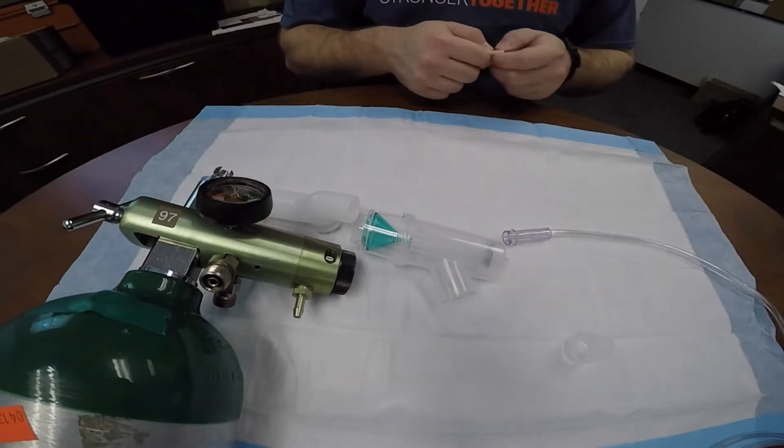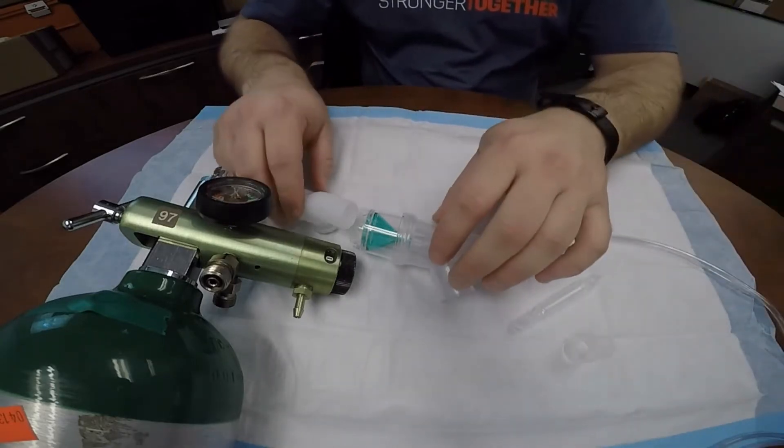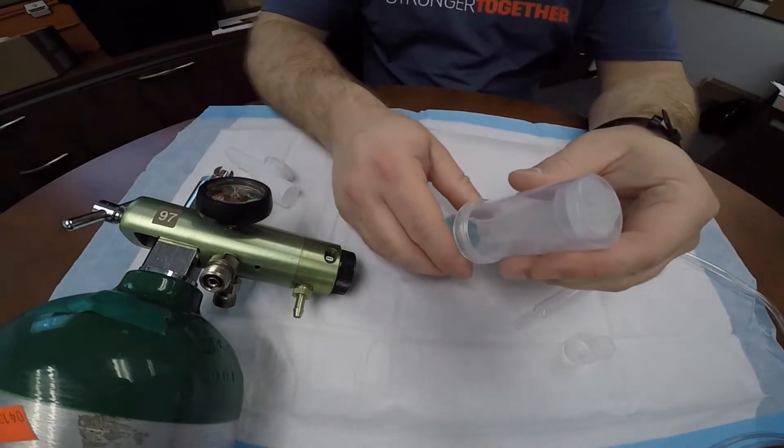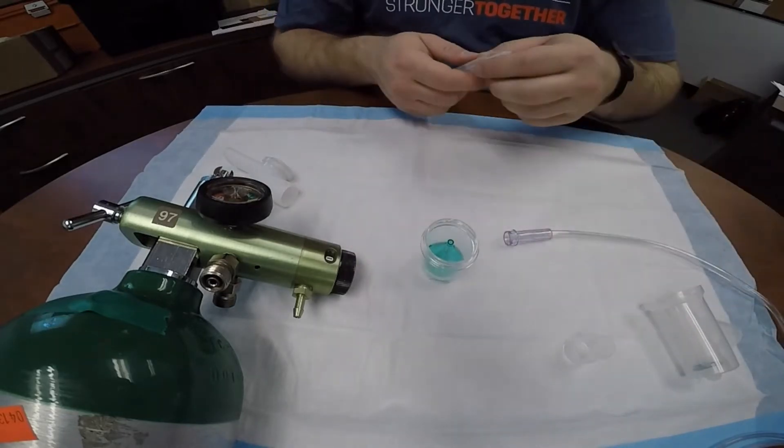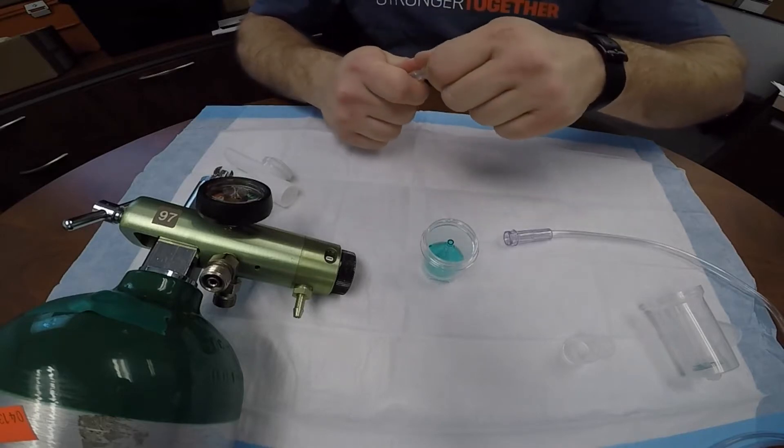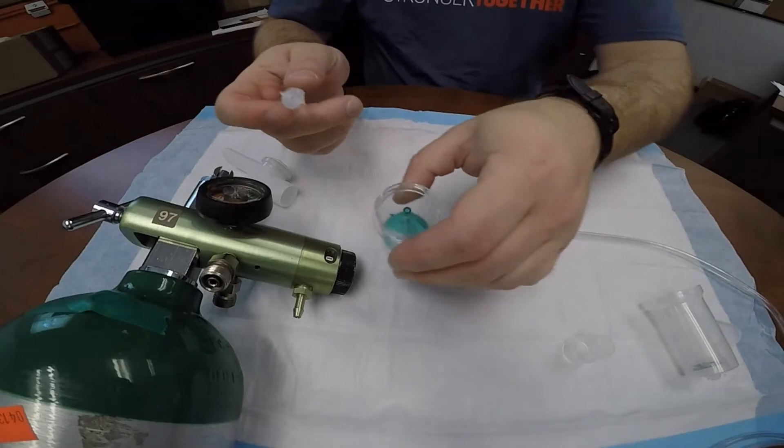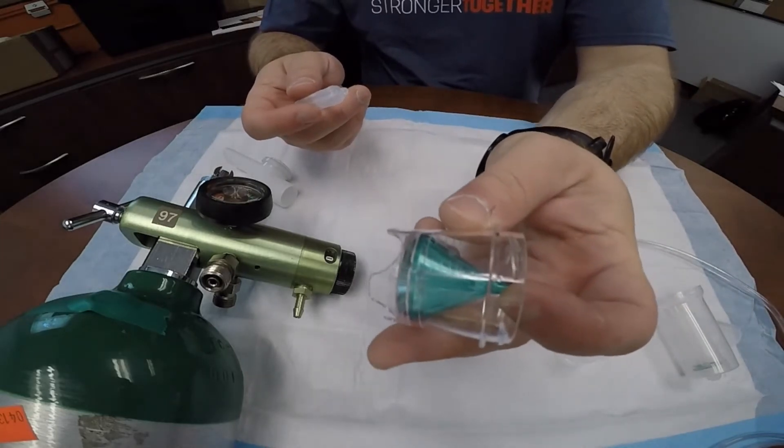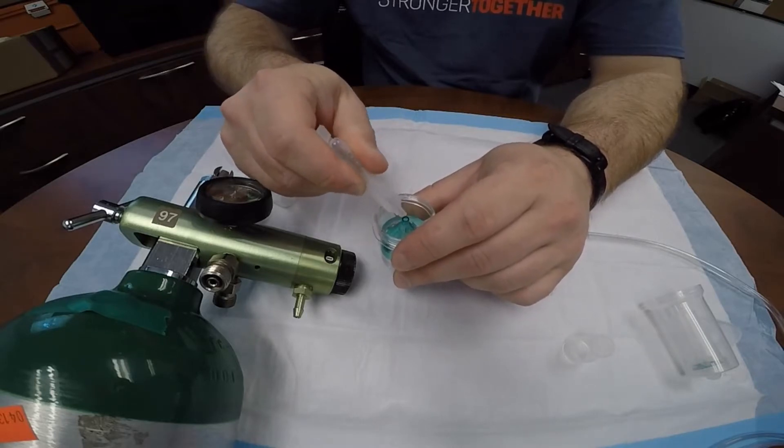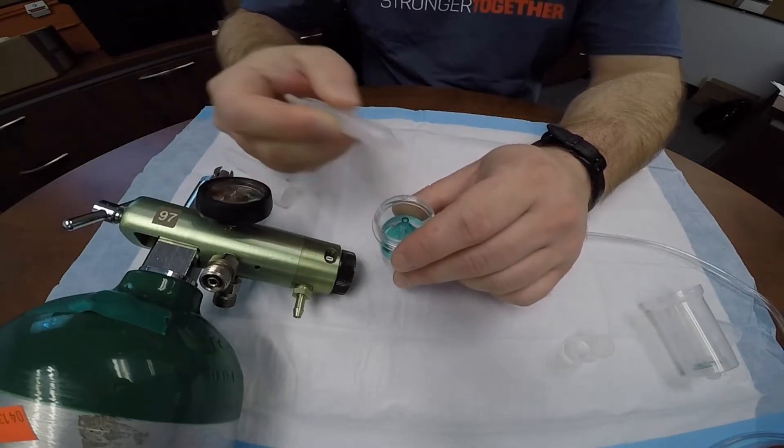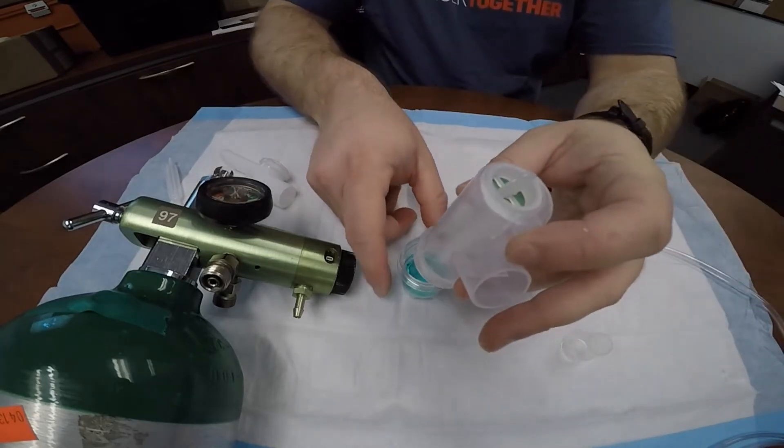You'll need the components shown above. Using a sample medication, the medication will be injected into the nebulizing chamber itself on top of the green cone. Make sure that the medication goes near the side and not directly down into the small hole at the top of the cone.